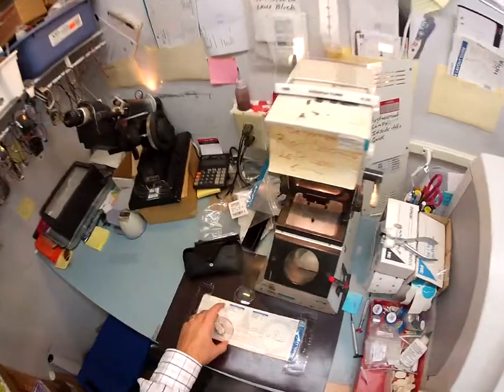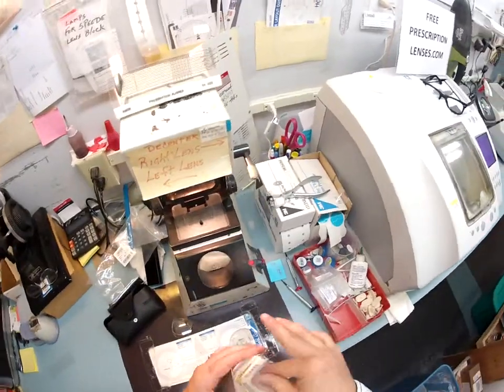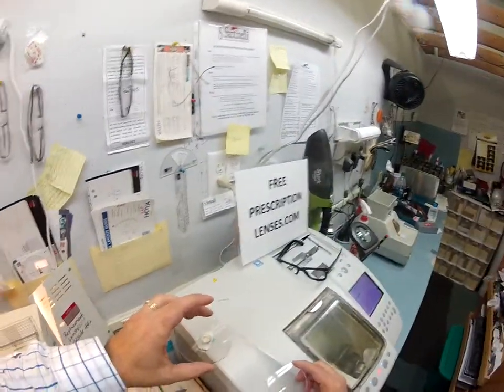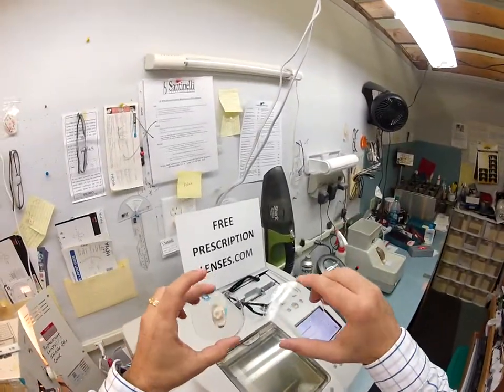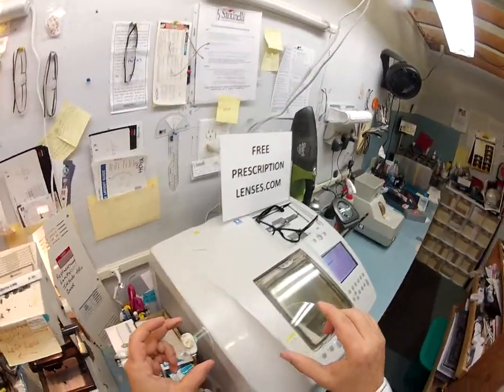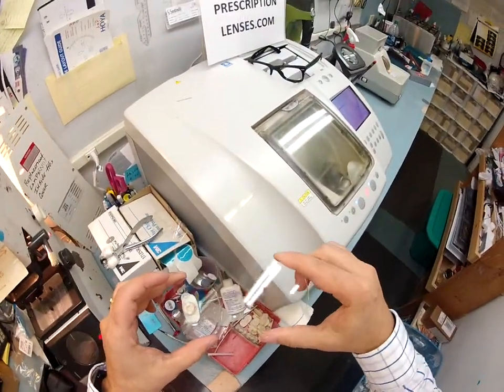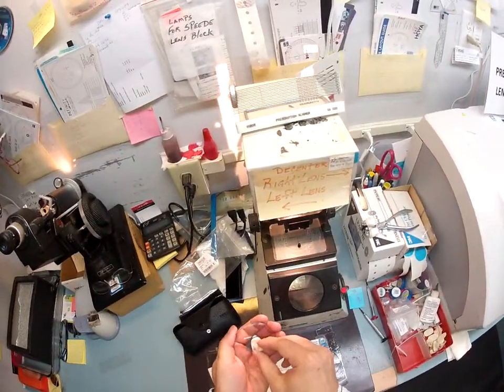The anti-glare coating is wonderful for driving at night, eliminating glare — especially if you're driving at night in the rain, from street lights, stop lights, computer screens, overhead lights, and fluorescent lights. It's also an anti-reflection lens, so when someone's looking at your glasses, they're not looking at their reflection in the lens. Or if someone takes a picture with a flash, you won't see the flash lit up in the lens. That is what you're getting. And it comes with the best scratch coating in the business — that's the other nice feature whenever you've got a premium lens.